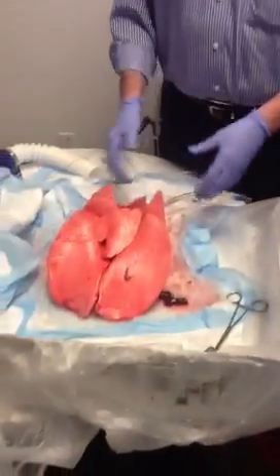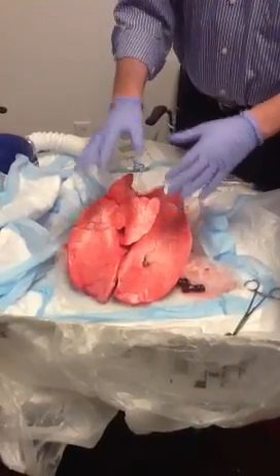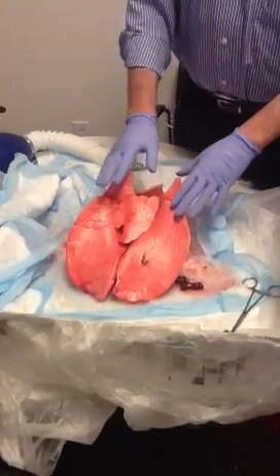I'm David Wheeler, the educator for Cardiothoracic Anesthesia, part of the Anesthesia Institute, Respiratory Therapy and Educator. Today we're going to look at a set of pig lungs and demonstrate different modes of ventilation, showing some basic examples of what's going on.